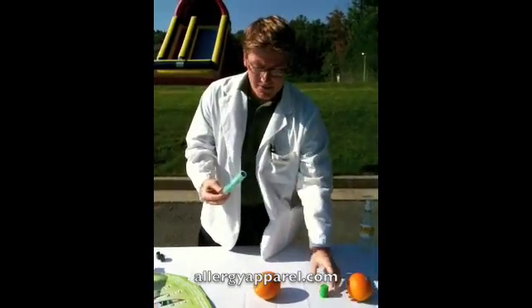You unscrew the green cap and you pull out the EpiPen. The needle will come out of the black top area, and to actuate the EpiPen you will unscrew the gray cap.